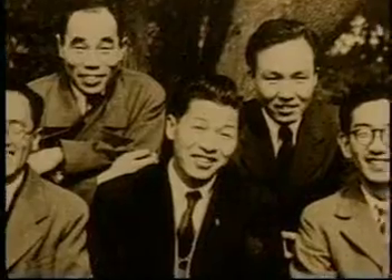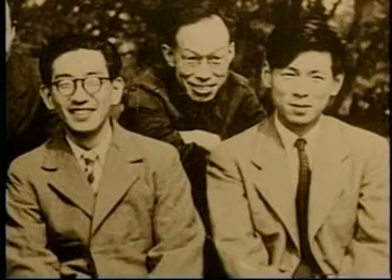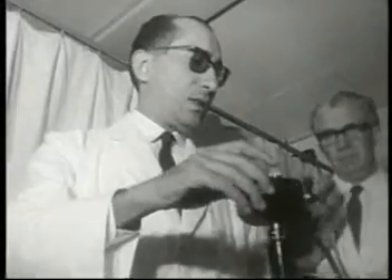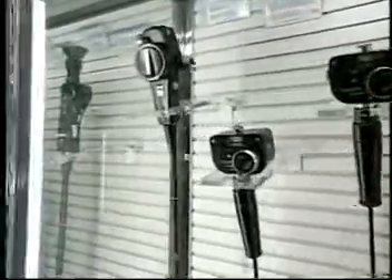The men who had developed the first gastro camera were in their early 30s. And on that day, the dream of those who suffered the horrors of war had been realized, to save many human lives. From that day forward, the gastro camera was recognized worldwide, and many physicians from numerous countries came to Japan to learn how to use it. Since the development of that first gastro camera, endoscopes have continuously evolved, and they now include optical fiber and video, but their objective has always been to detect cancer in its early stages. In 1949, in the middle of a raging typhoon, a young doctor and a technician talked about their dream of developing the first gastro camera — a conversation that changed the diagnosis of cancer worldwide.